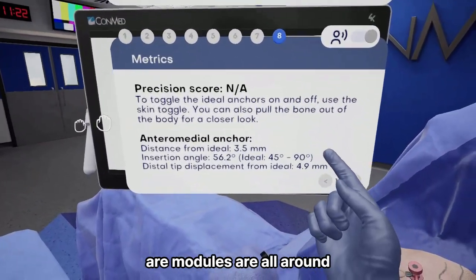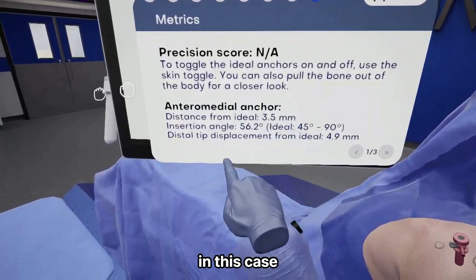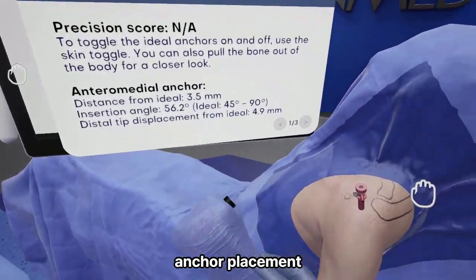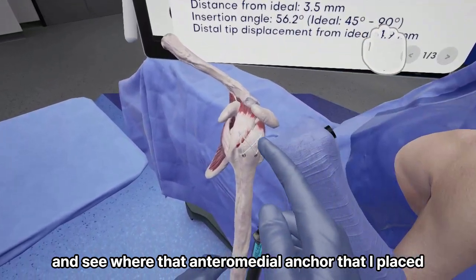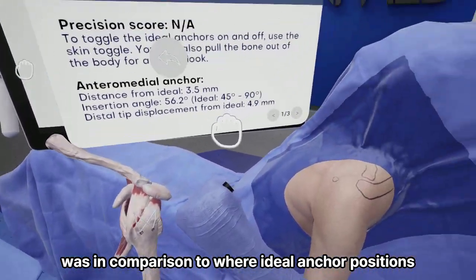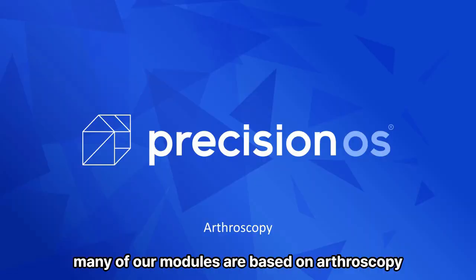Our modules are all built around the idea of providing learners with feedback. In this case, I can see how I've done on my anteromedial anchor placement. I can pull the bones out of the body and see where that anteromedial anchor that I placed was, in comparison to where ideal anchor positions are.